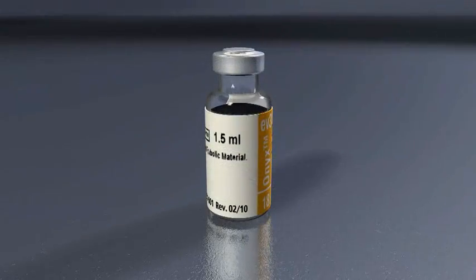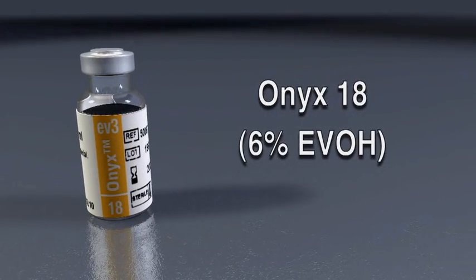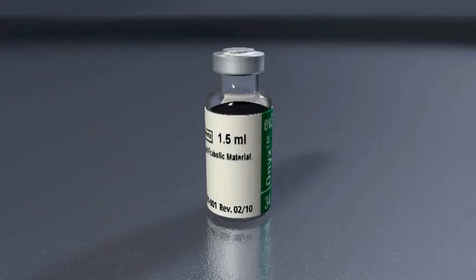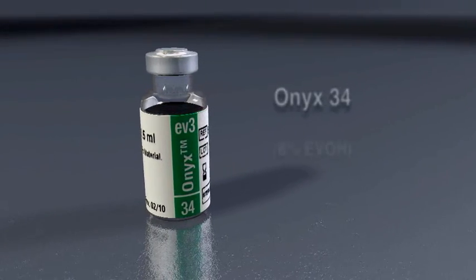Onyx is available in two product formulations: Onyx 18, 6% EVOH, and Onyx 34, 8% EVOH.